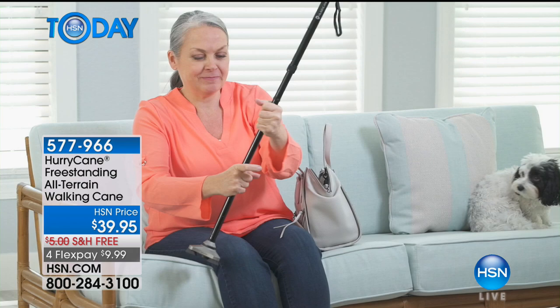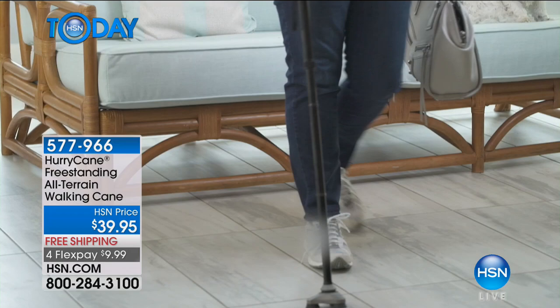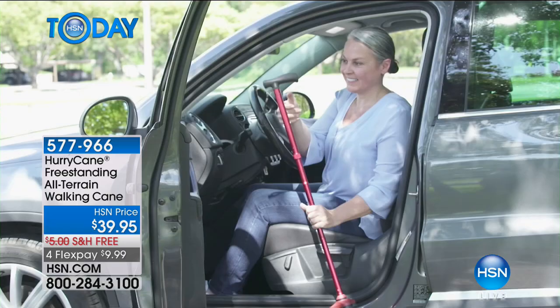When we think about people that have a hard time getting around, the last thing you want to do is worry about the cane that you have — will it be strong enough? Will it actually work with me? Well, this one has some incredible features, including its incredible portability. Look how it just snaps together — that's three seconds, and you are ready to go.